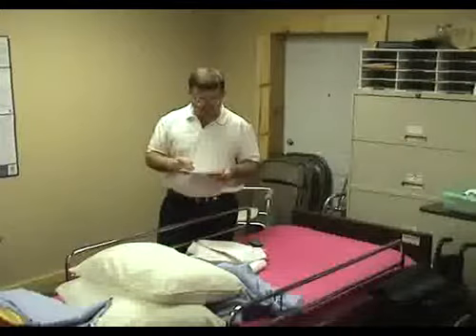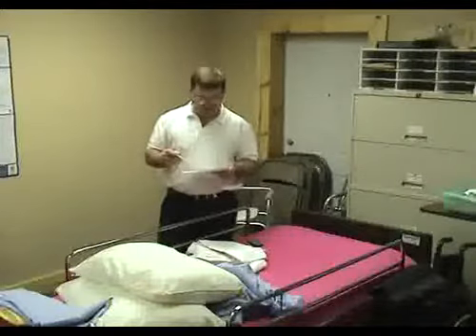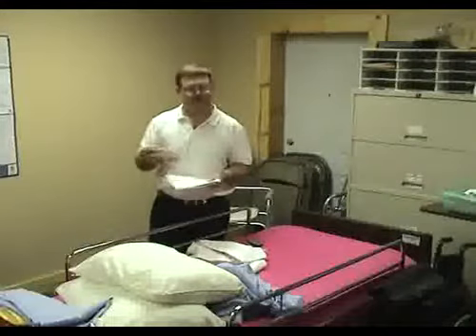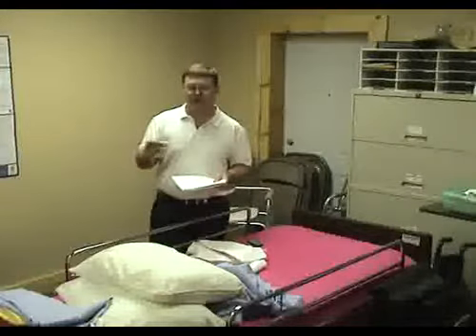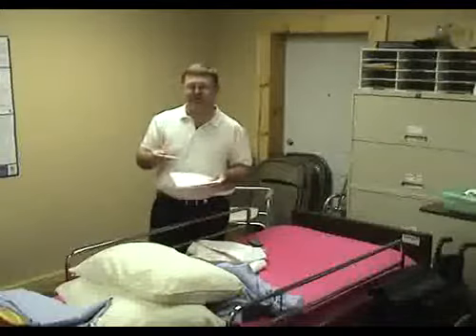Number 3, correctly inserts the thermometer into the designated location and leaves it in place as follows. Digital thermometers will beep automatically. They already have it timed. When you push the button and put it in, normally it's about 60 seconds, and it'll beep. Some are faster, some are slower, and some are really hard to hear, especially for older patients. They lose that higher frequency of hearing as they get older. So they have ones that light up now whenever they're done, and these just chirp like a bird.